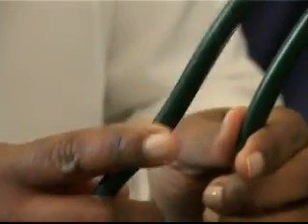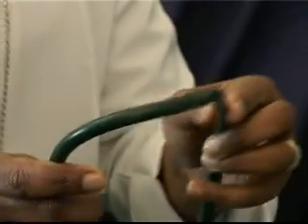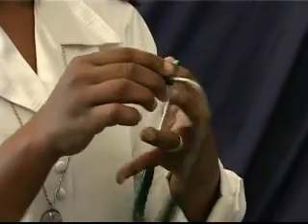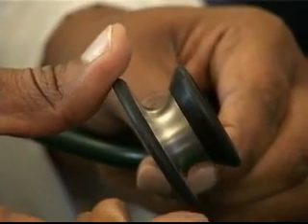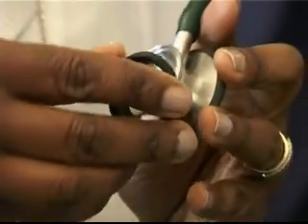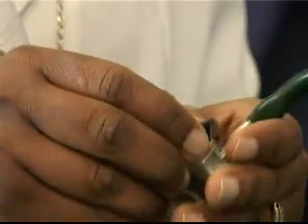The tubing, spring assembly, and chest piece should be checked regularly to ensure that the tubing is not broken or perished. The plastic ear pieces must be cleaned and the spring assembly must not be broken. The diaphragm must not be damaged, and the switchover mechanism from listening with the bell side and the diaphragm side must be functional. The bell chest piece must also have a non-chill sleeve over the edge to ensure patient comfort.